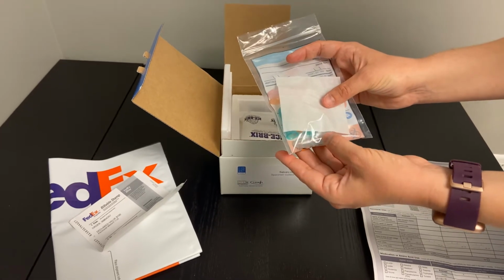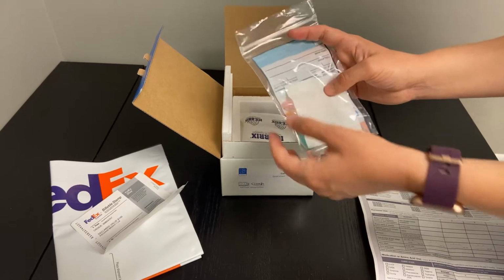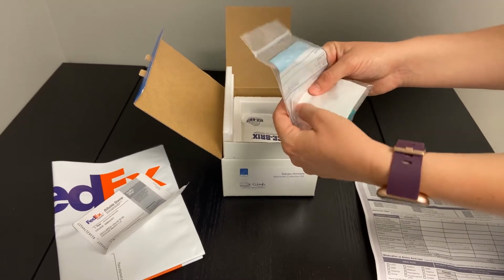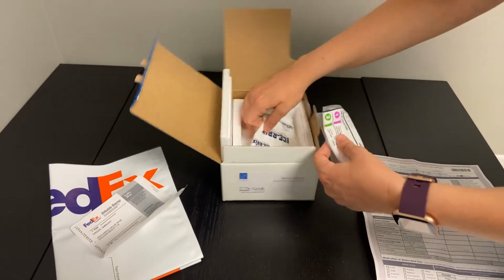If you overfill the tubes, really going over that 3/4 mark up the tube, they will explode, and that will just make the specimen not viable. So important to follow those instructions there for sure.